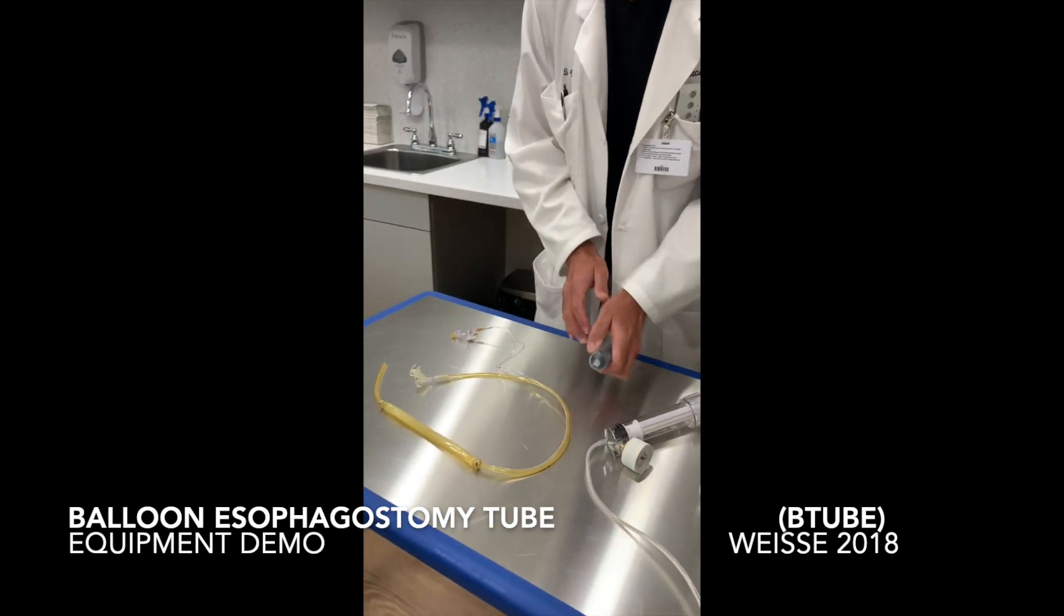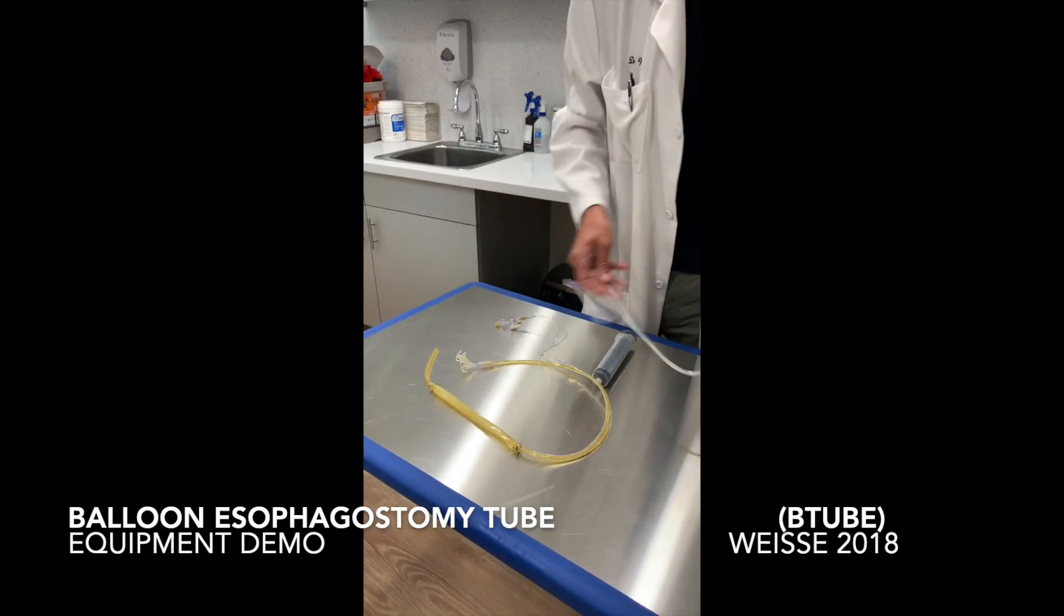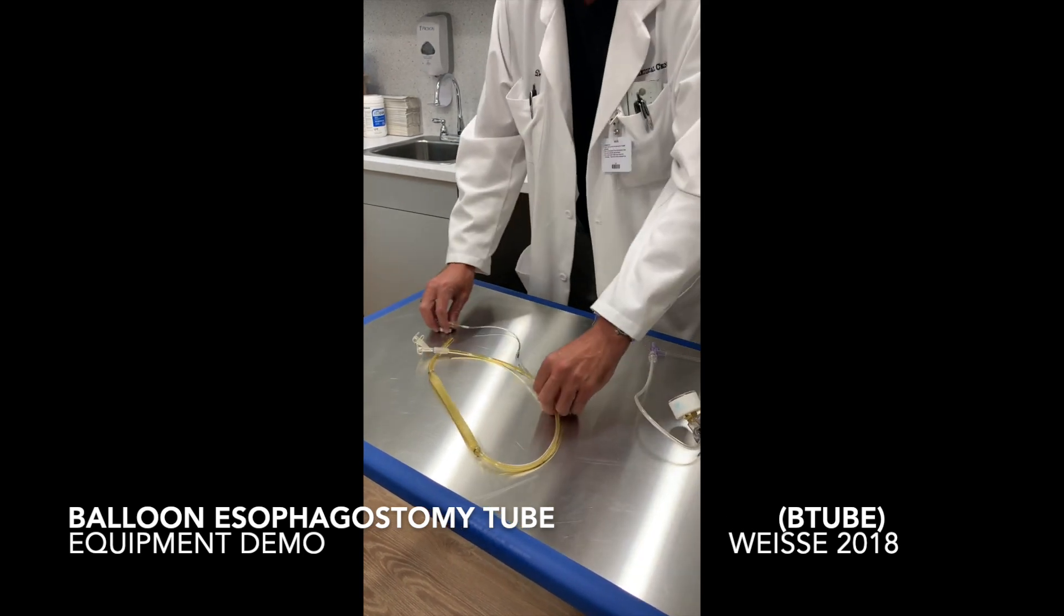We're going to start. We have our syringe. We have our inflation device. Here's everything.